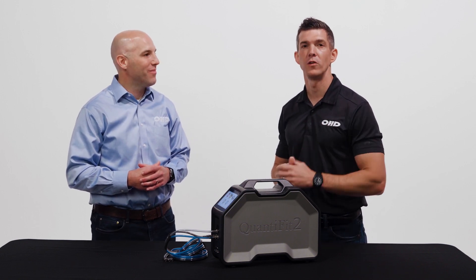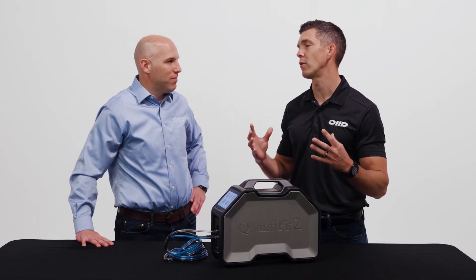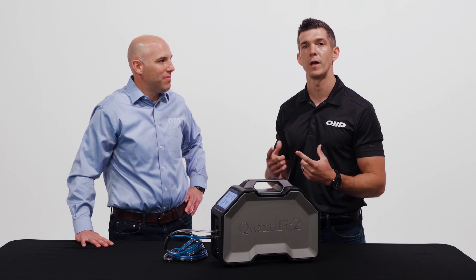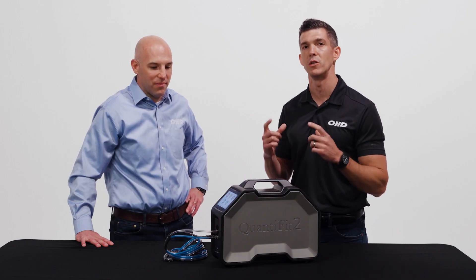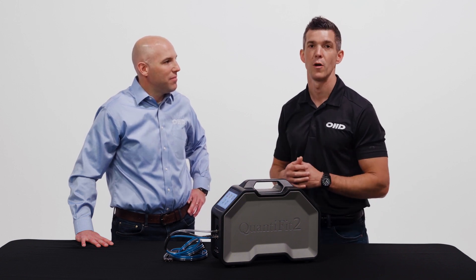Today we're going to provide a QUANTIFIT II demonstration of this respirator fit testing device utilizing controlled negative pressure technology found within every global regulation around the world. The way that technology works is it pulls a heavy breathing rate — a working rate — on the respirator, and once that respirator has that breathing rate pulled, it measures air leakage into the respirator. That's a key difference of this technology: it utilizes air to challenge the respirator and measure leak to provide a fit factor during fit testing.